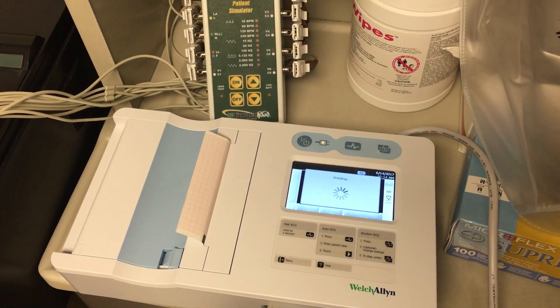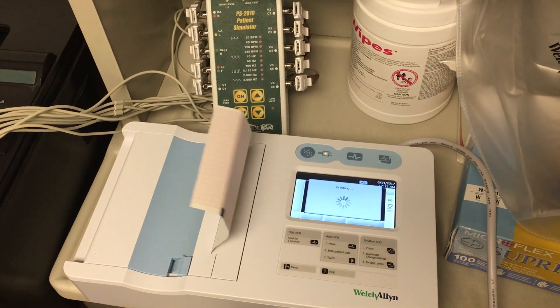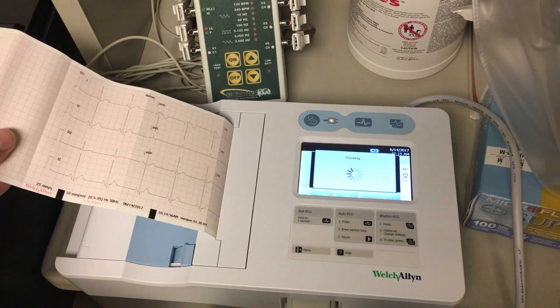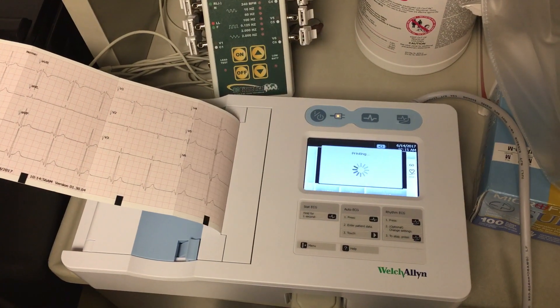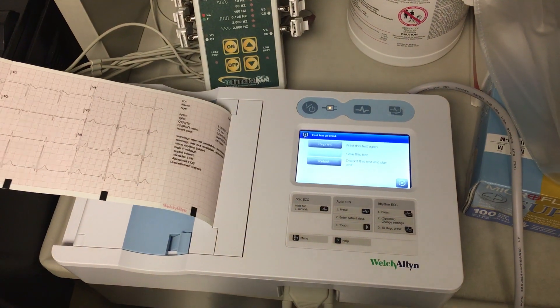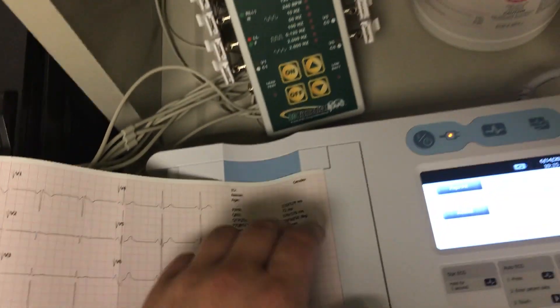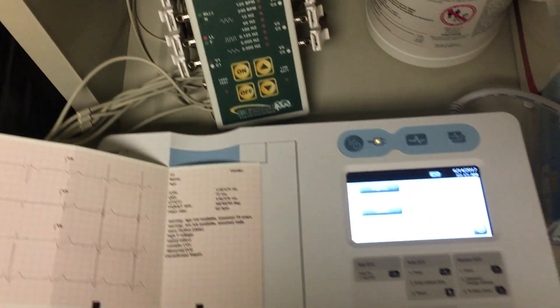Yeah here we go. Now we see the report. 60 BPM — yeah, matched. Okay, that's it.